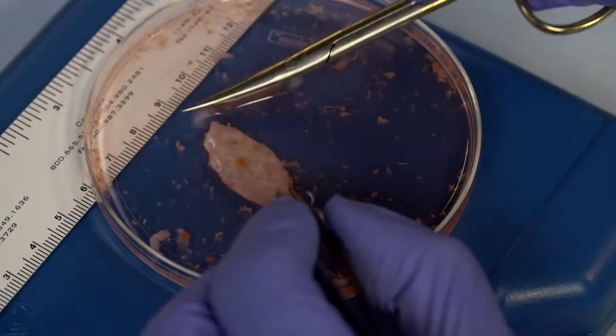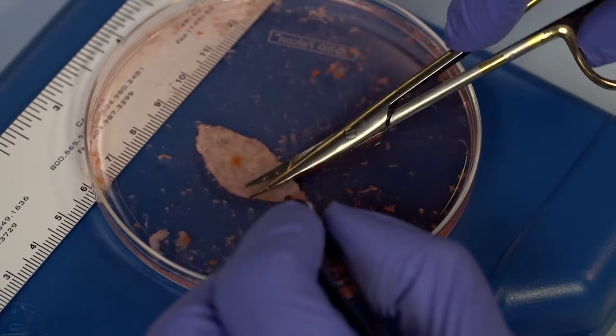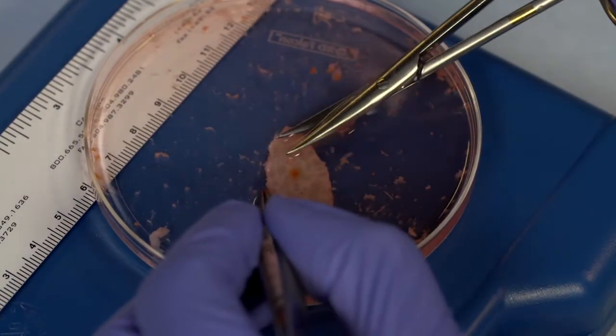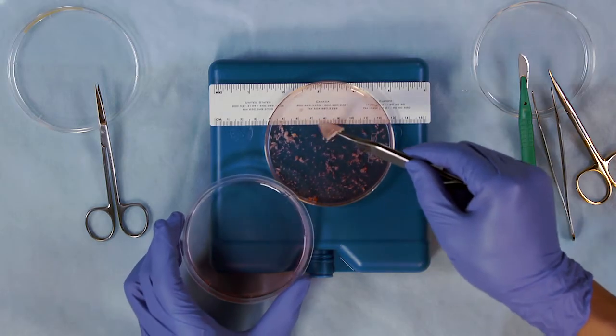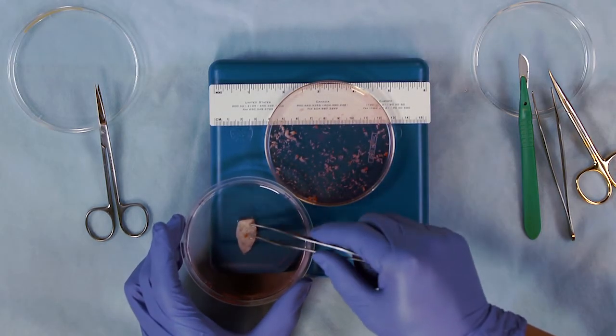All human ovaries are unique. The age of the patient can vastly influence the time it takes for dissection and the tools that are used. Rinse the tissue carefully with holding media and move the tissue to a clean dish.